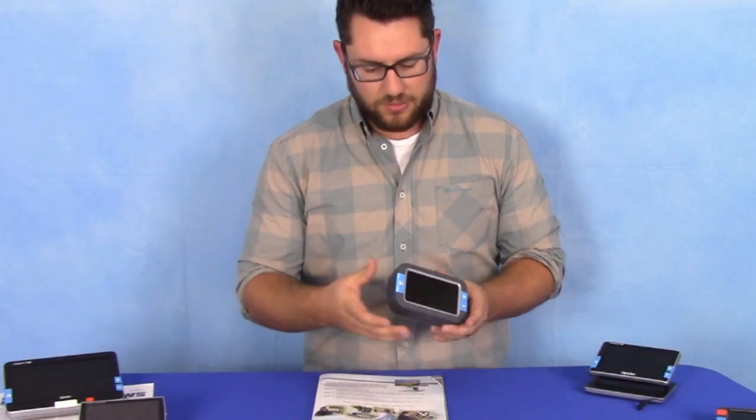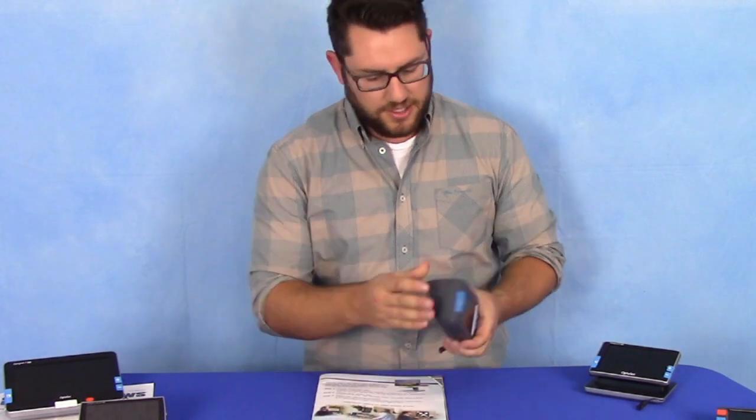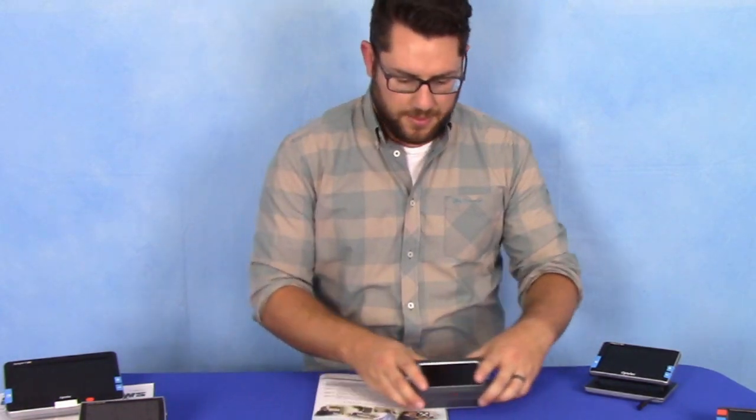It's tactile with a rubberized grip, so again very comfortable to use. It slides easily with this rounded bottom and a specialized plastic coating so you're not snagging the edge of your paper as you move it along.